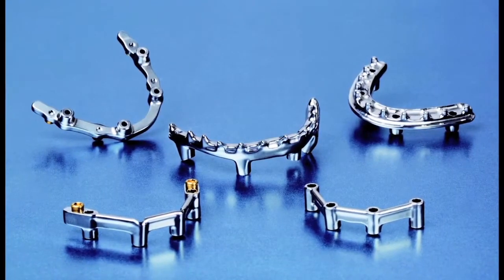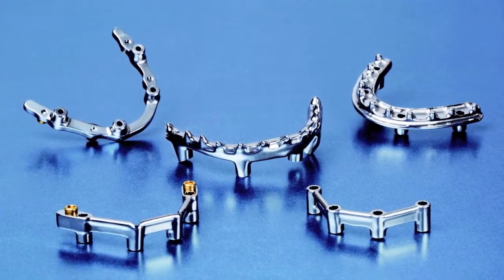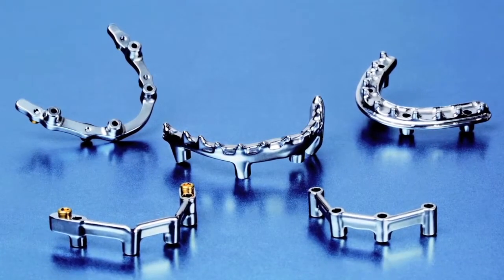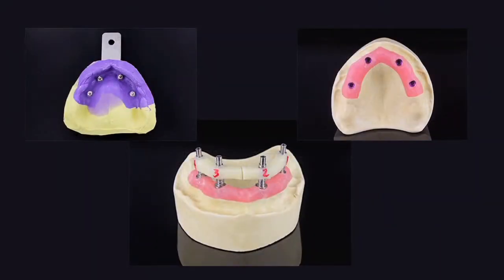This video describes the process of designing and milling inclusive CAD-CAM titanium bars at Glidewell. The lab produces a stone model from final impressions verified with an implant verification jig.